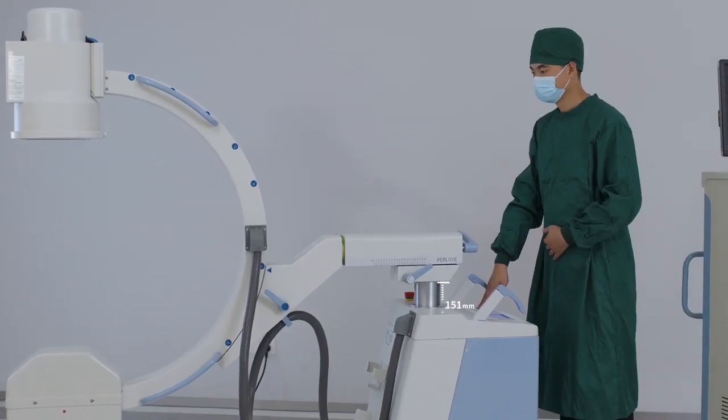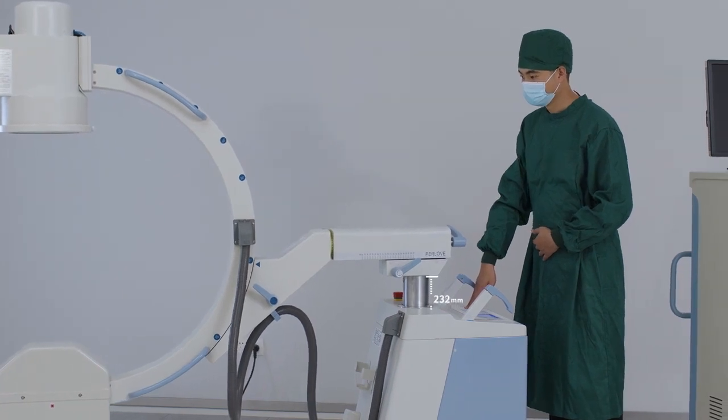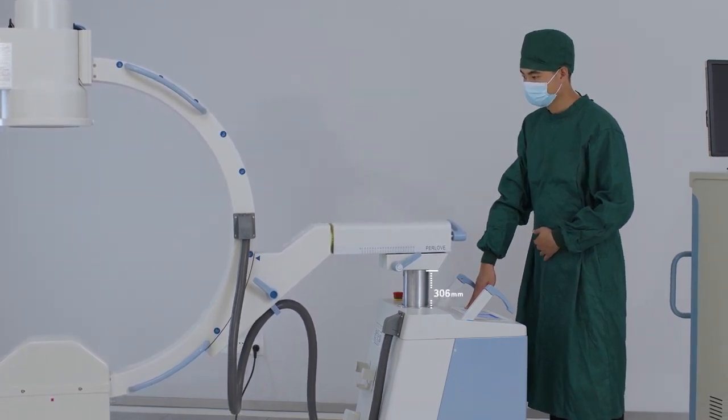When you press this button, the C-Arm's electrical lifting range is 400mm.